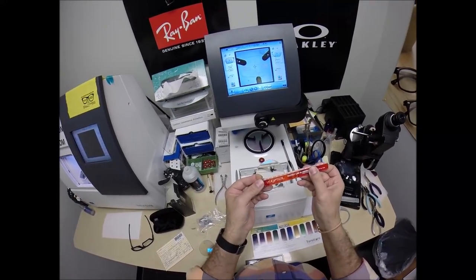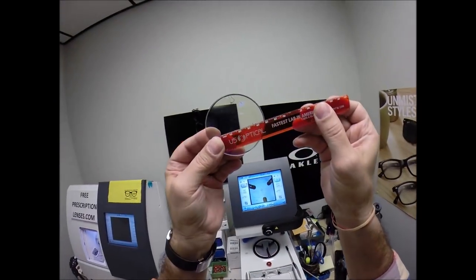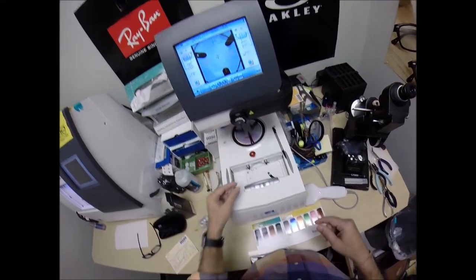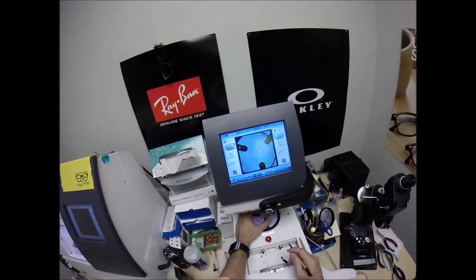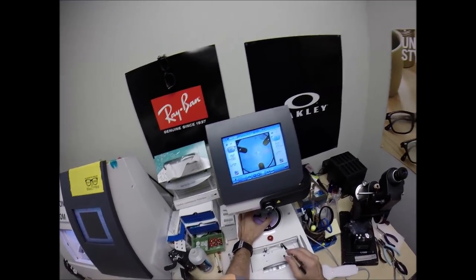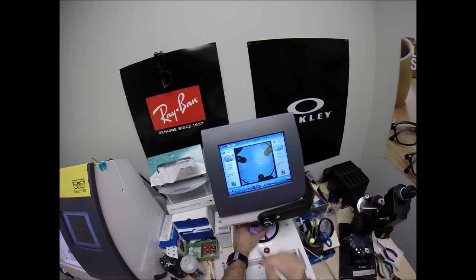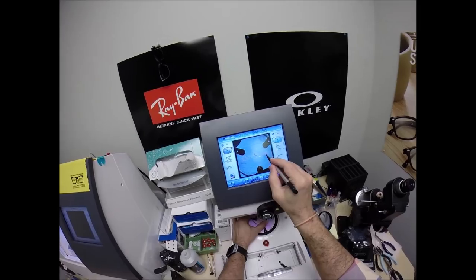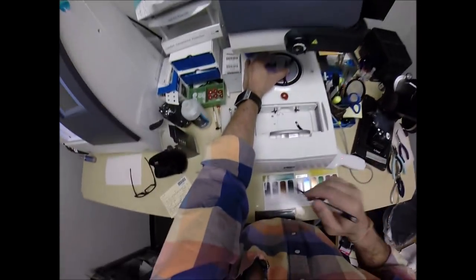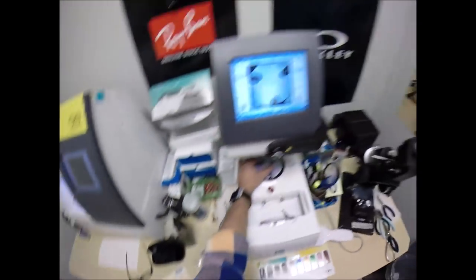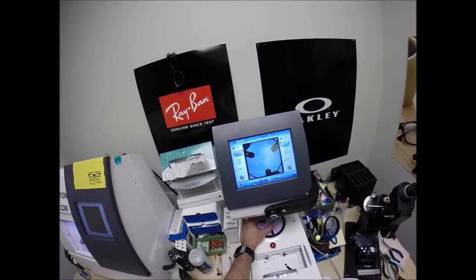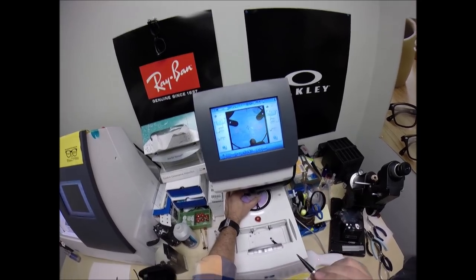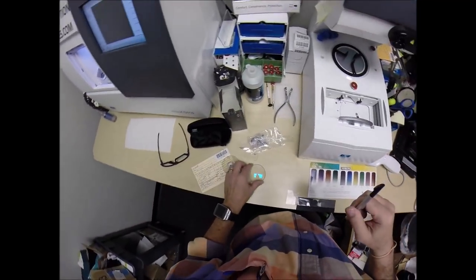I'm going to pull the paper away to make the black side sticky, line up the magnet. The reason why I have those dots on there, your optical center, and these two, which are four below the Essilor lenses, is a four drop. Those dots are going to be four millimeters below and 17 millimeters outward on each side, 34 millimeters apart.